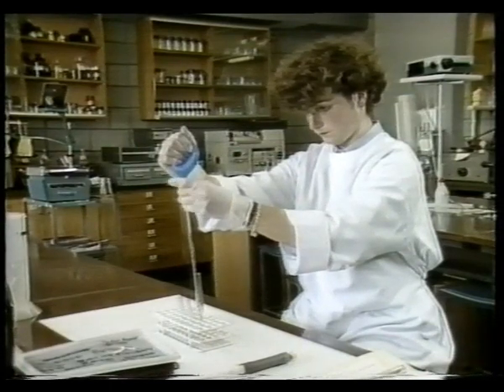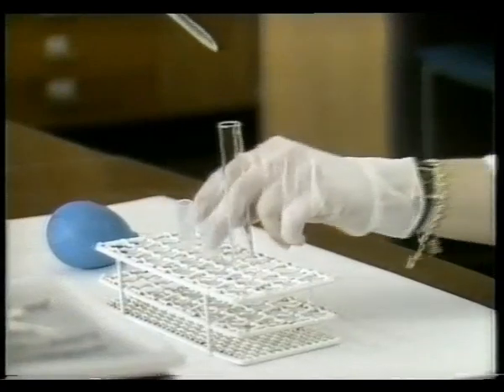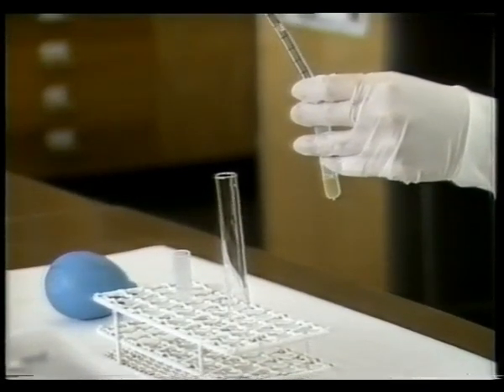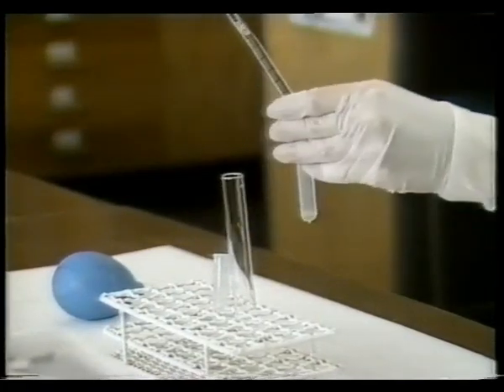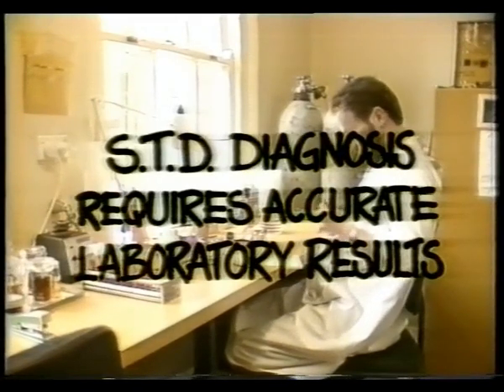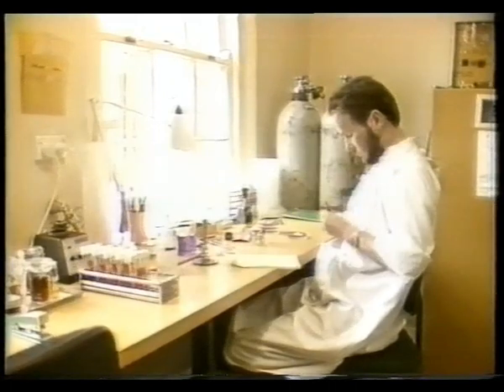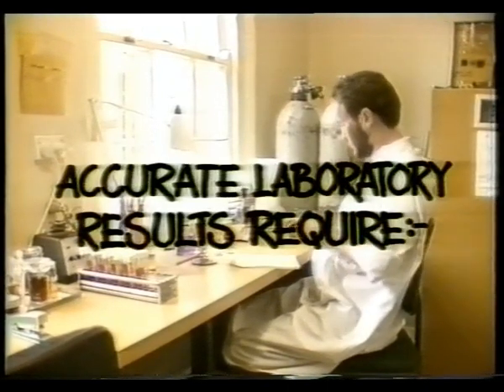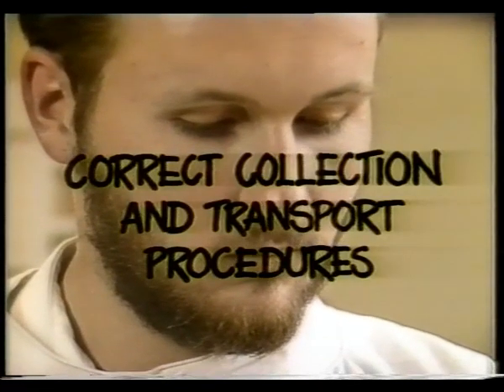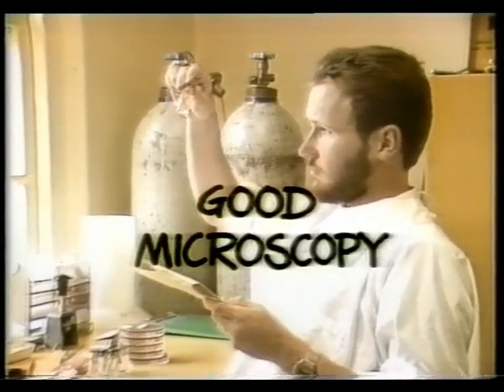Finally, syphilis serology. There are many tests for syphilis antibodies, and these procedures are often performed in specialist laboratories. The knowledge of STD is expanding rapidly and procedures for isolation and identification of causative agents change rapidly. The major points to remember are: one, the diagnosis of STD is complicated by the number of organisms and clinical presentations involved, and therefore accurate laboratory results are essential. Two, accurate laboratory results are dependent upon adequate information on clinical presentation, patient history, and correct specimen collection and transport procedures. Three, accurate laboratory results also depend on rapid processing, good microscopy, and sound choice of media.